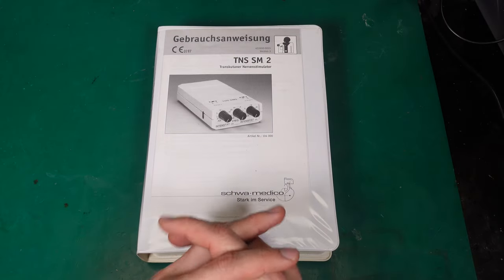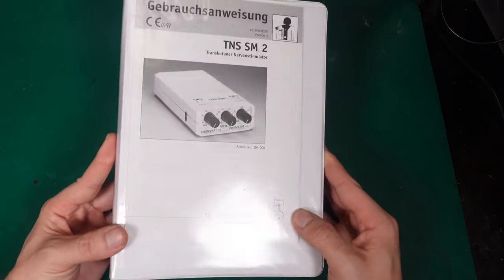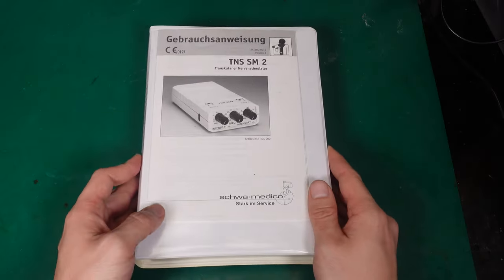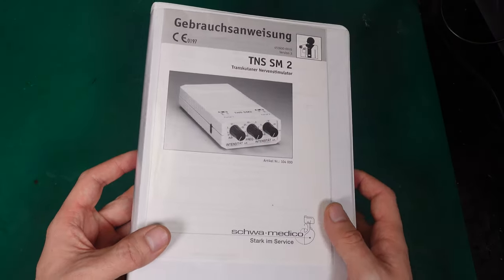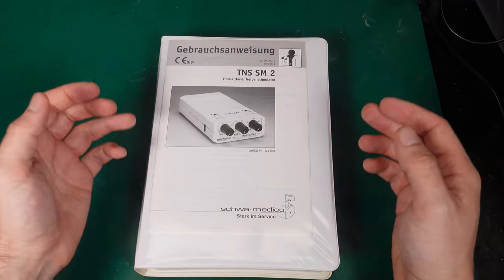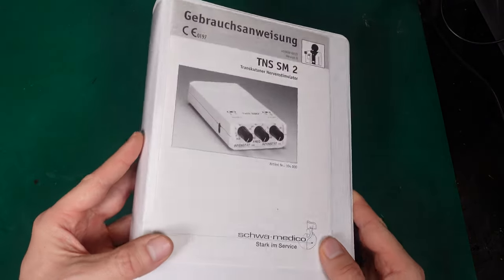Hello, today I would like to show you this TENS muscle stimulator. This is quite an interesting device that you attach by electrodes to your body, and this unit is creating high voltage spikes. You can use this to relieve your pain or to stimulate your muscles, like if you are after some kind of accident.